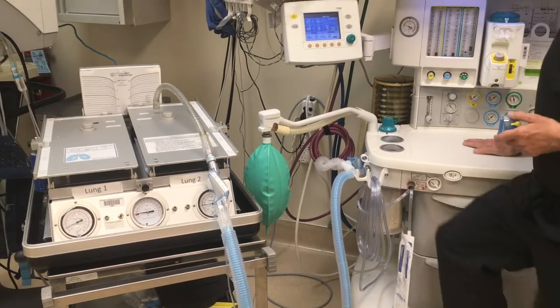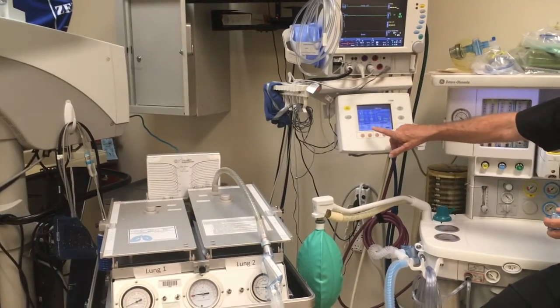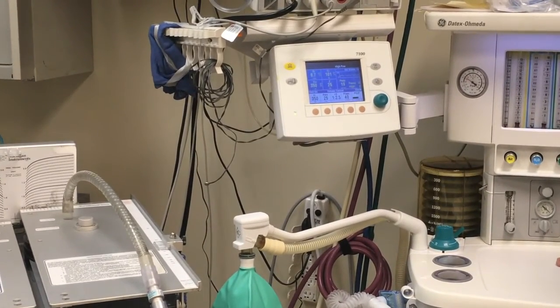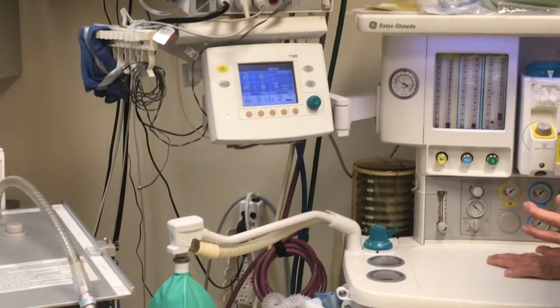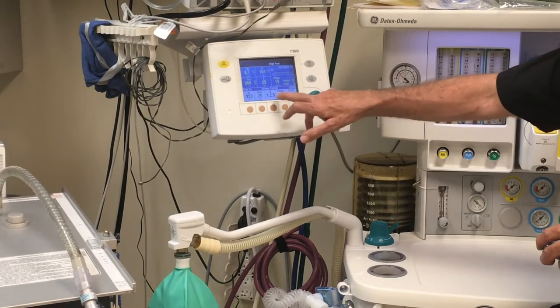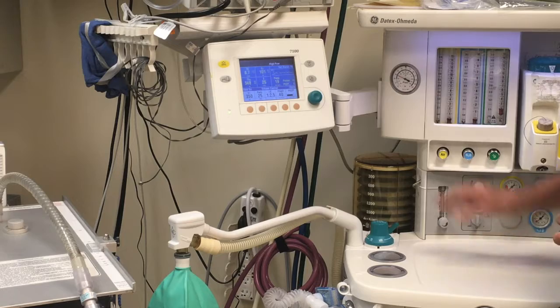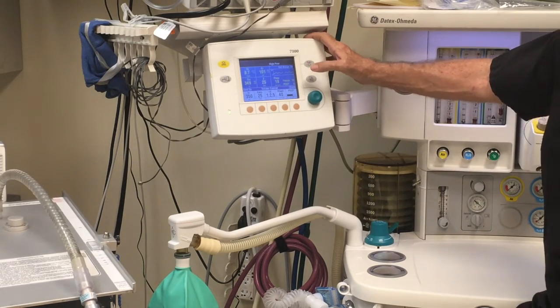For the COVID-19 patient with ARDS, we're going to discuss tidal volume control. We tend to use 4 to 7 milliliters per kilo with a rate of 20 to 30. We do an I:E of 1 to 2, 1 to 2.5. And you want to have a pressure limit max of 40, preferably 25, I think, down to 25 to 30.